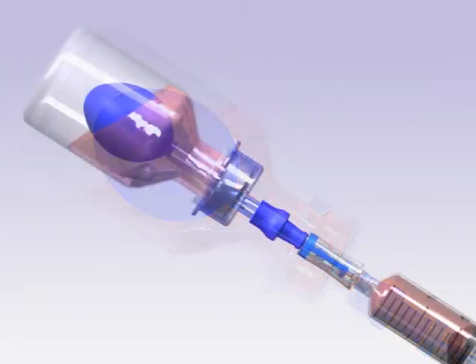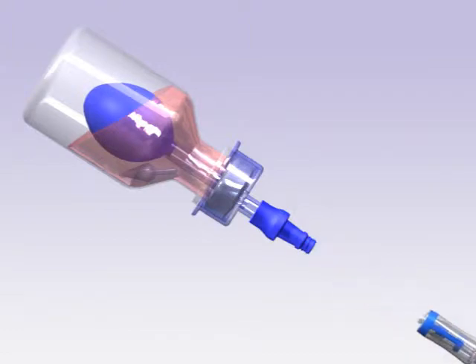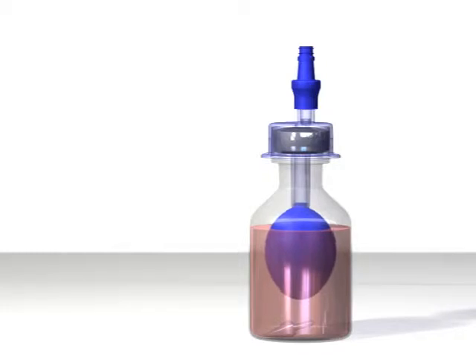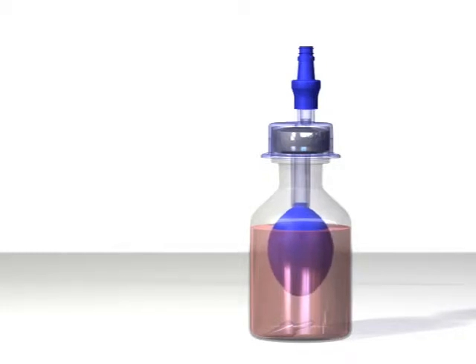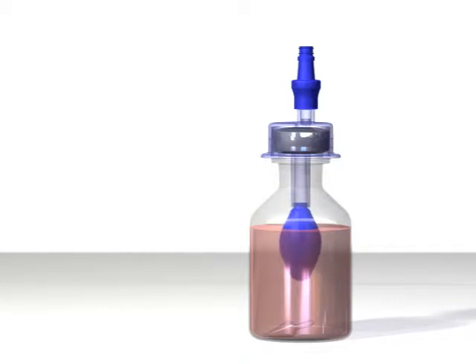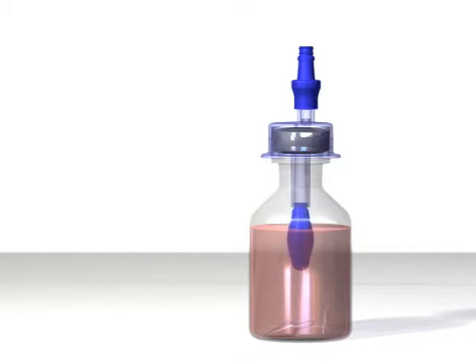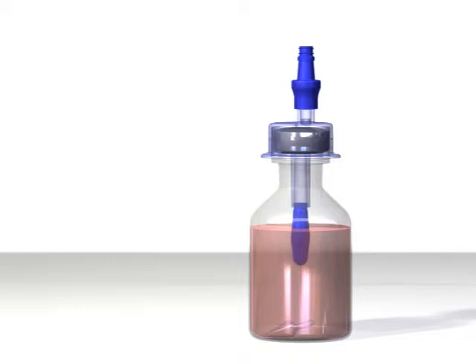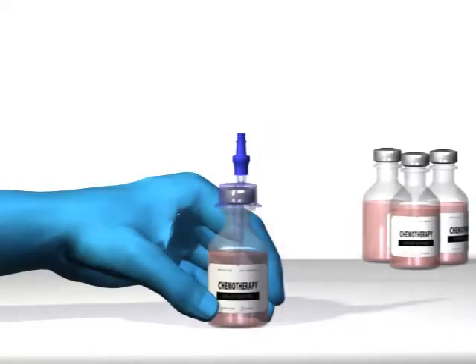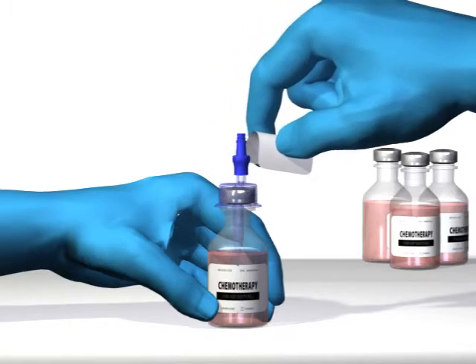When your withdrawal is complete, simply remove the syringe. Over time, the balloon will deflate within the vial — this is clean air passing into the vial from the balloon to equalize the pressure. No airborne contaminants have the ability to pass through the balloon; only air molecules can.